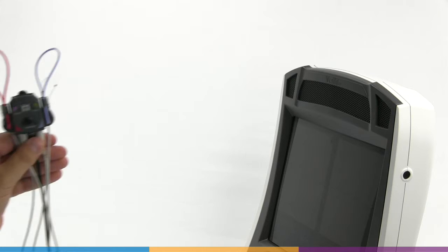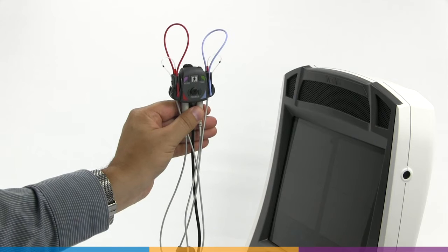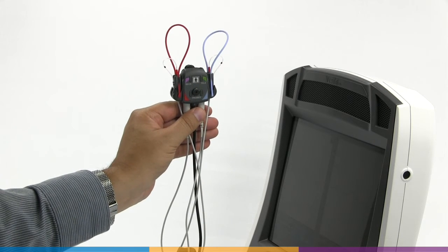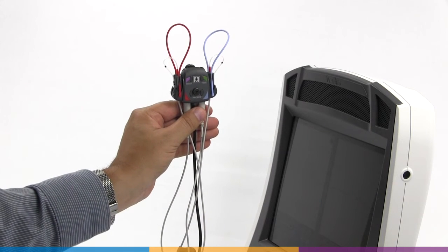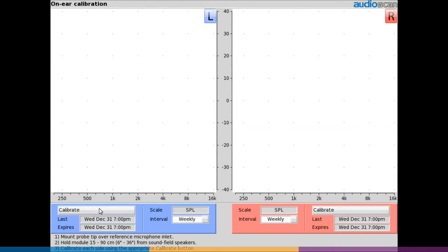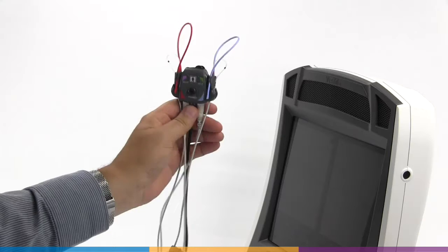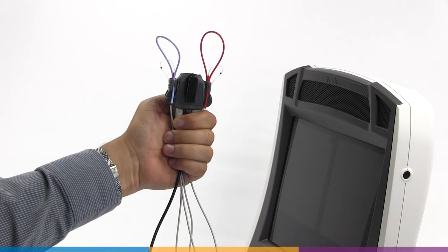Select the on-screen calibrate button for the probe mic you are calibrating. Then rotate the probe dock 180 degrees and repeat with the second microphone, clicking the on-screen calibrate button for the other side.